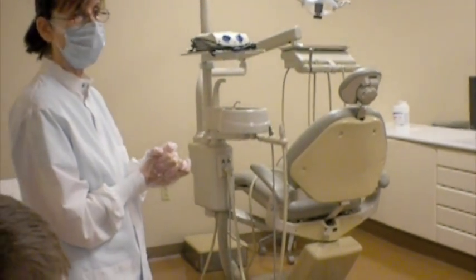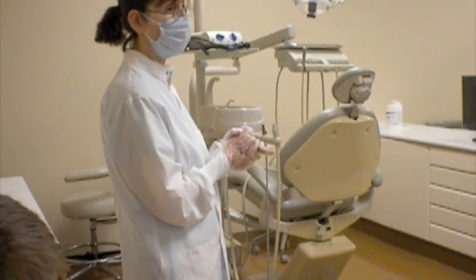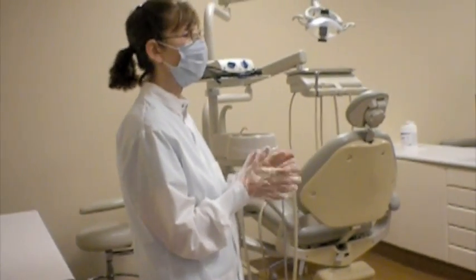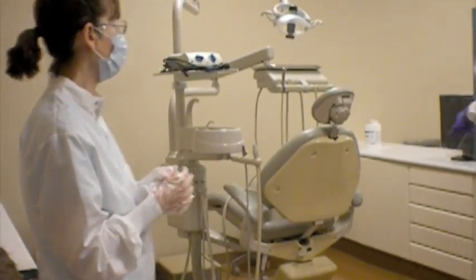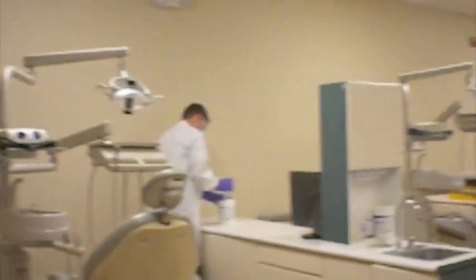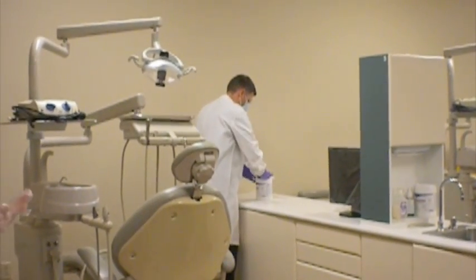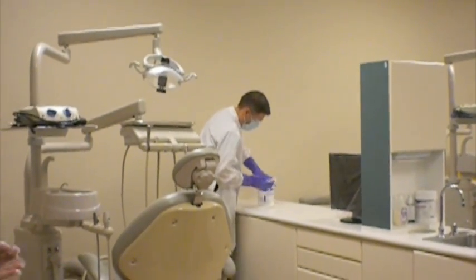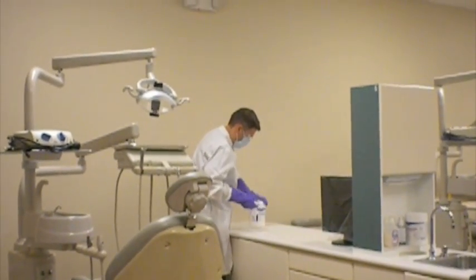Questions on that at all? So the first process then is the canister, the sanitization and the disinfection of the canister, because if I don't do that, I'm not ready to proceed with the remaining areas for wiping. So the disinfection wipe will occur now. And you can see that sometimes the wipes may tear off and not come through the hole quite as well as you want them to. You just have to go into the canister and re-thread it and bring them out.